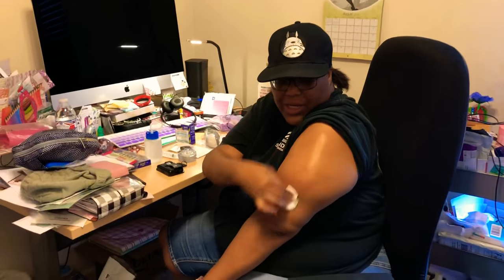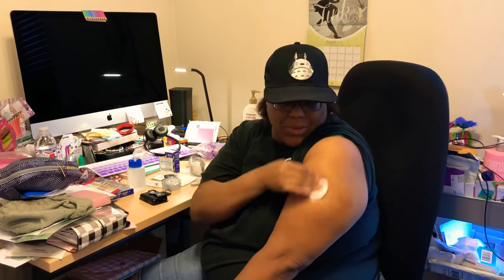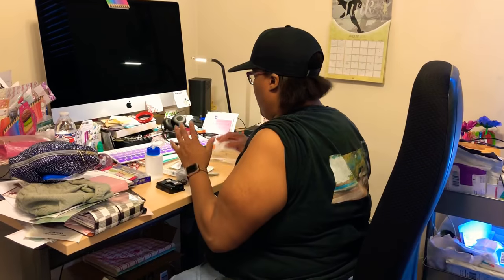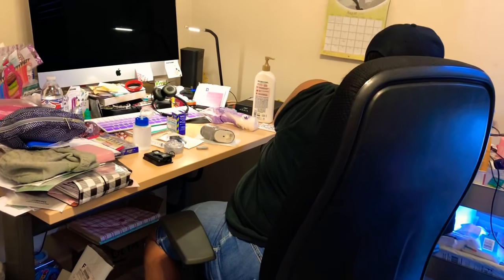We're going to get started. I'm going to do my Dexcom — alcohol it down. This is actually dirty, which is funny because I took a shower this morning. I don't understand why it's dirty that quick. We're going to let this dry.